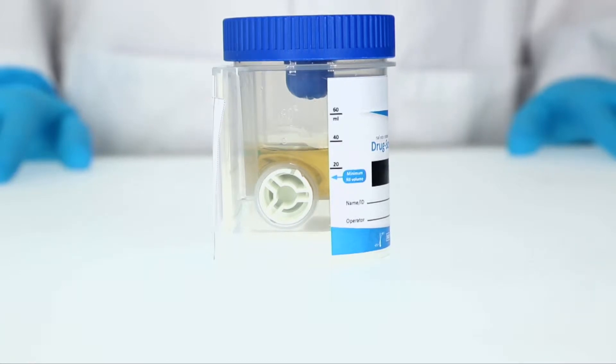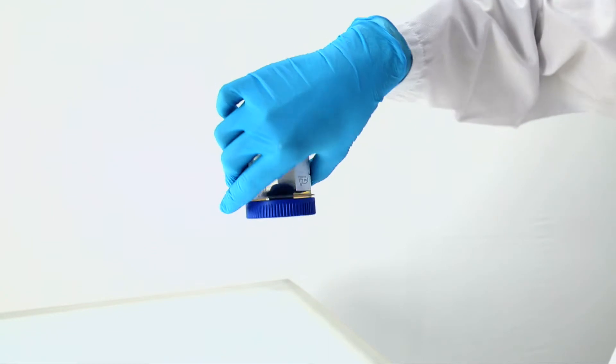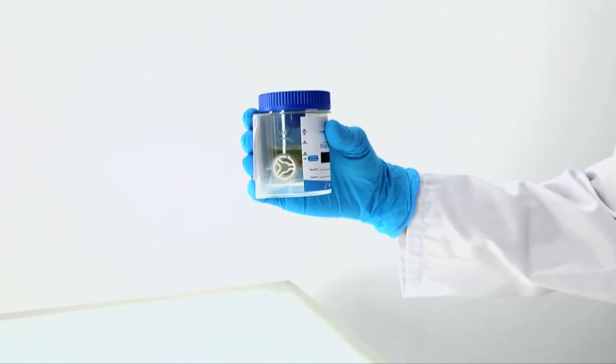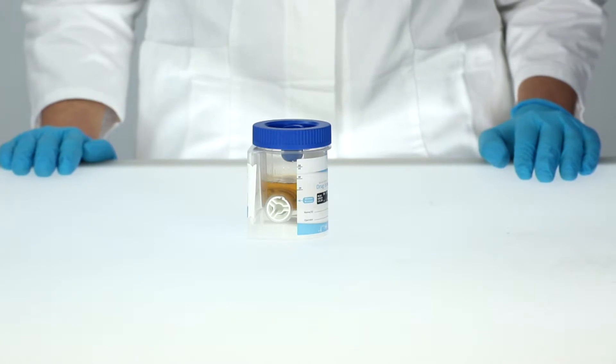The Nahl von Minden drug screen cup test is extremely hygienic, minimising the risk of coming into contact with the sample. Sampling and testing can also take place at separate locations and times.